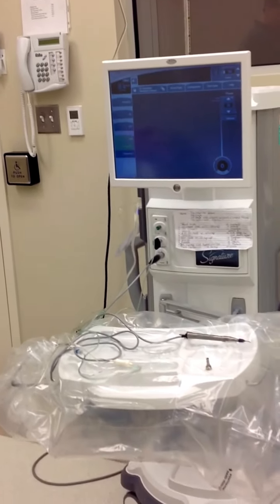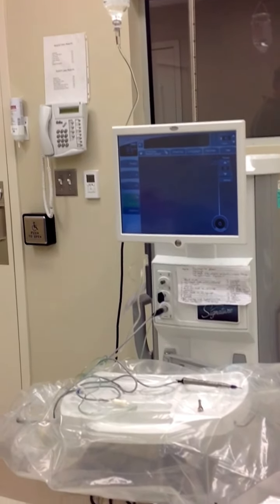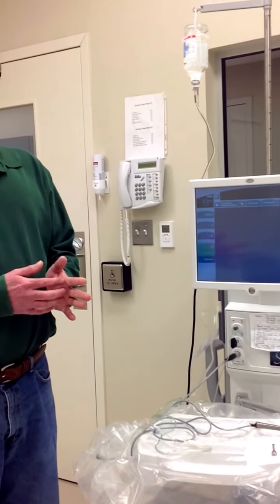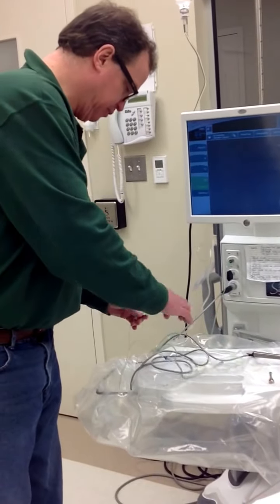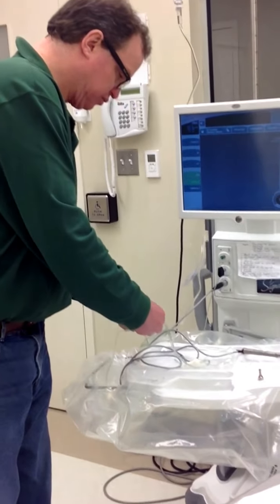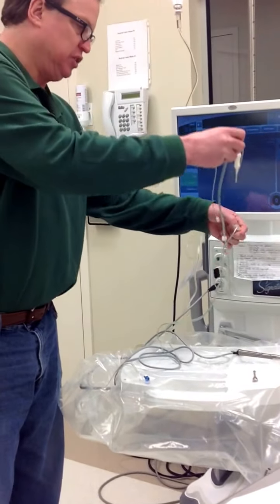So that kind of wraps up where the machine is in normal operation, but to have a little extra fun, what we're going to do now is we're going to set up the machine with the most common errors that staff make to show the error messages that you got and the fixes for those error messages. So we'll disconnect the vitrector. And by disconnecting it, so if someone did use it, this is just how they would disconnect it? Exactly what you're doing right now?